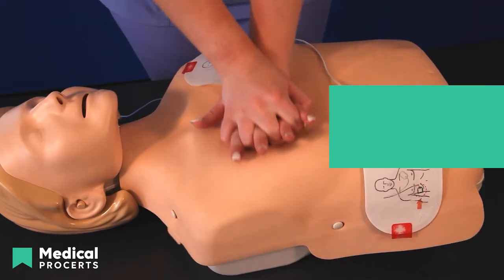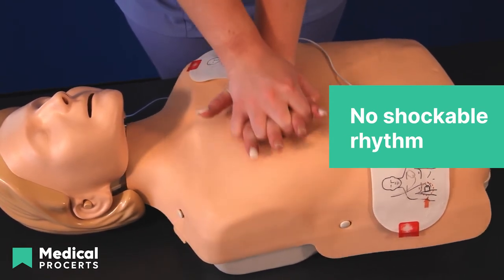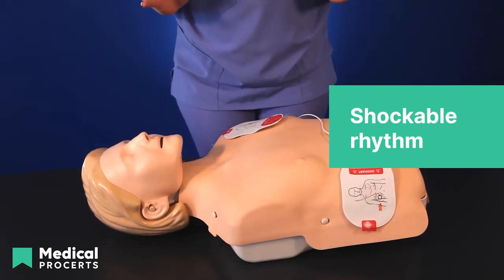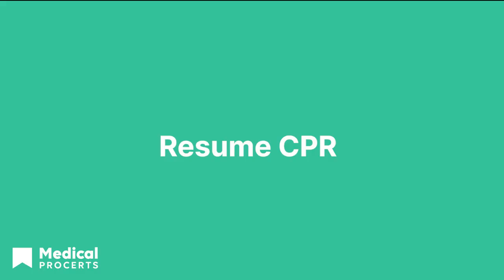If the AED prompts that no shock is advised, resume chest compressions. If the AED prompts that a shock is needed, remove oxygen and make sure that no one is touching the victim. To deliver the shock, press and hold the shock button. Resume chest compressions after the shock. Continue following the prompts from the AED, continuing the cycles until the person becomes responsive or the EMS have arrived.